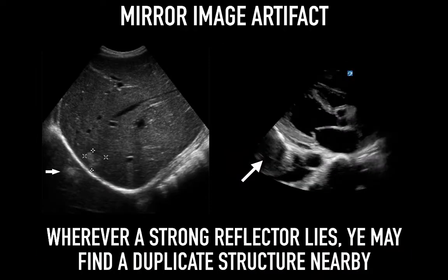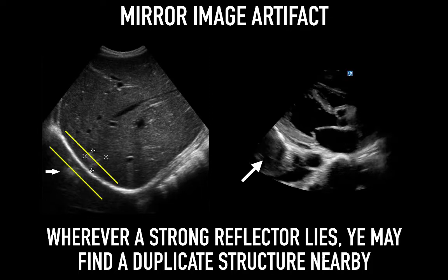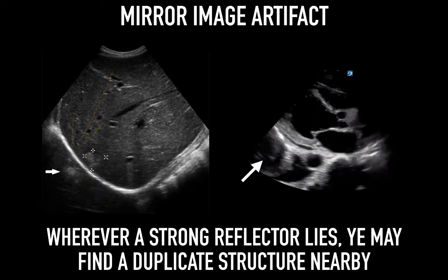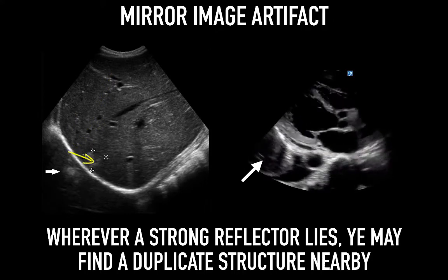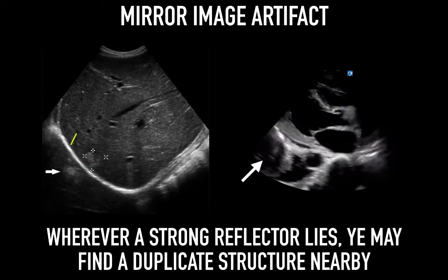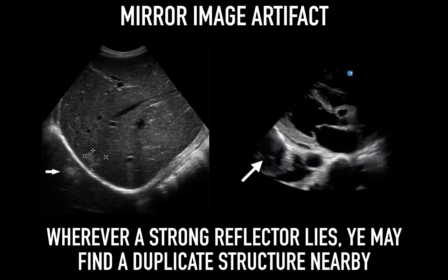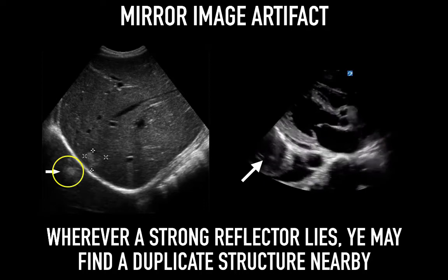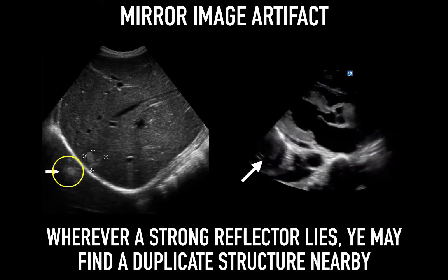Mirror image artifact is another common artifact we can see with highly reflective surfaces, such as the diaphragm, which is in the path of the primary beam. This leads to multiple reflections. The primary beam reflects from such a surface like the diaphragm, but instead of being reflected back to the transducer, it encounters another structure such as a nodular lesion in its path and is reflected back to the diaphragm, then reflected back to the transducer — so the beam takes multiple paths. The machine makes a false assumption that the returning echo has been reflected once, and hence delayed echoes are judged as if being returned from a deeper structure, giving a mirror artifact on the other side of the reflective surface.